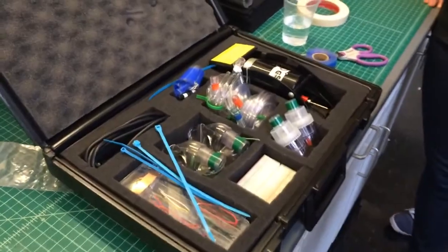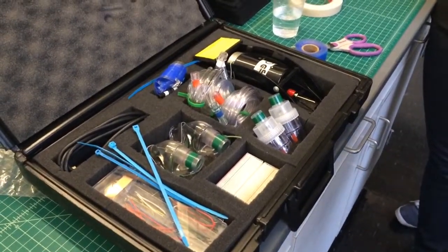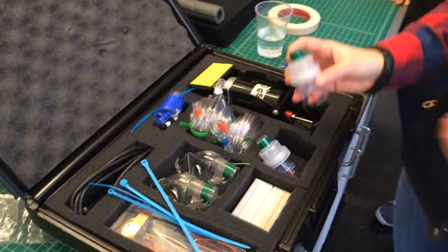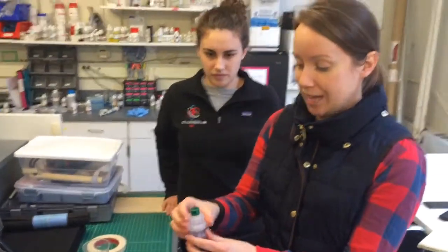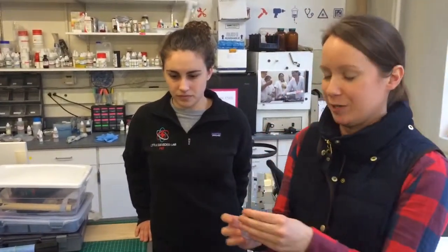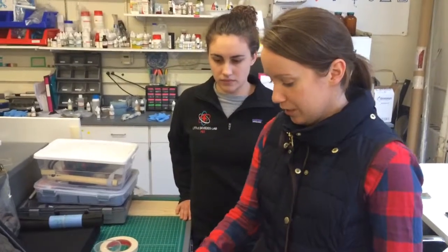So what are we looking at here? This is a kit to design a manual-powered nebulizer. This is the nebulizer for asthmatic patients. You need to actually get medicine into their lungs, either during an asthma attack or if you have a respiratory condition that requires this as treatment.